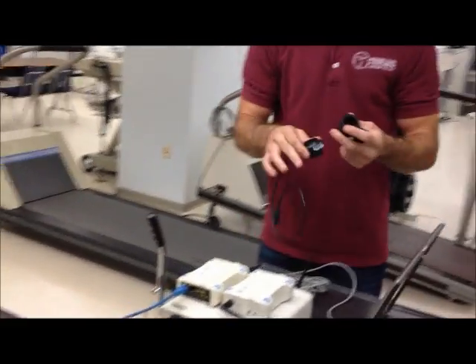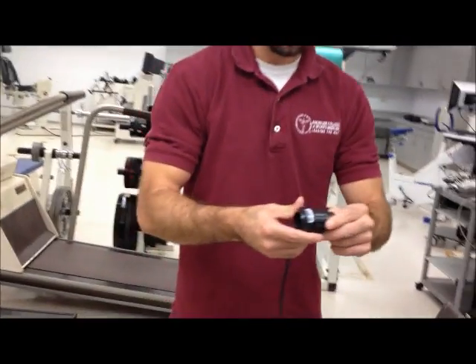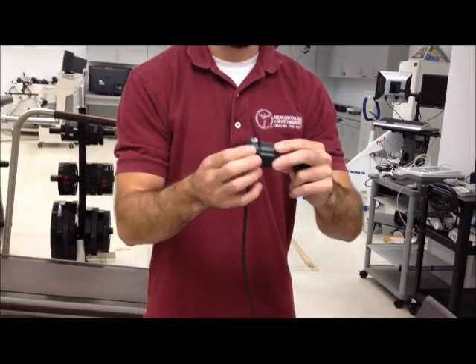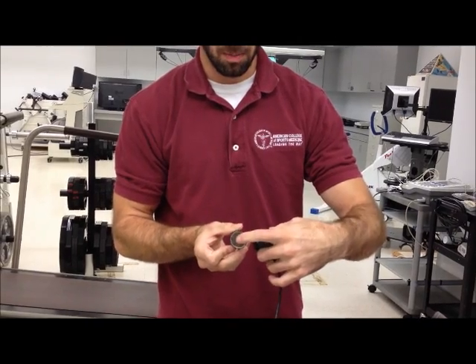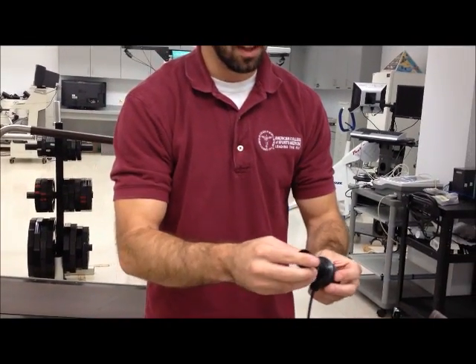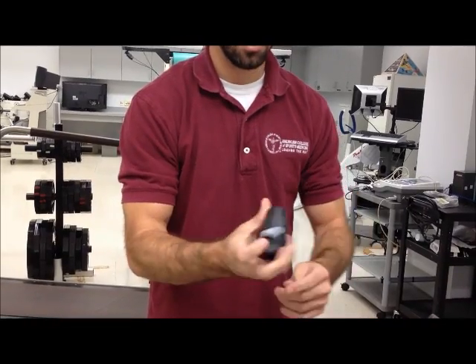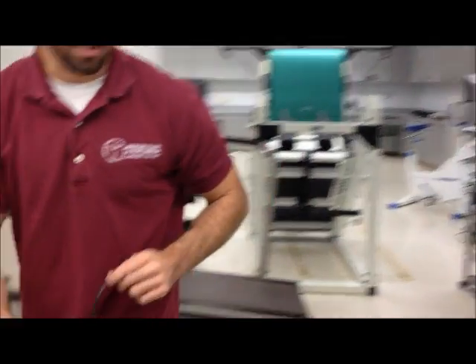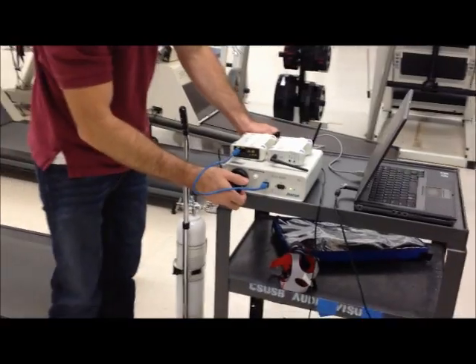So you want to connect these two like this. Then you take the part with the block. See this side is the turbine head. You want to put this side in this way so it's nice and snug in there. You're going to plug this into the front of the receiving unit like so.